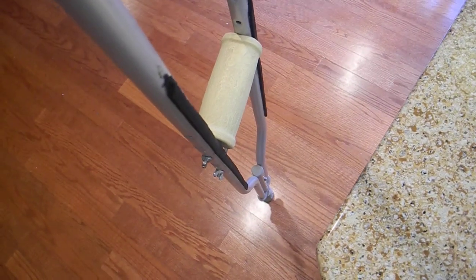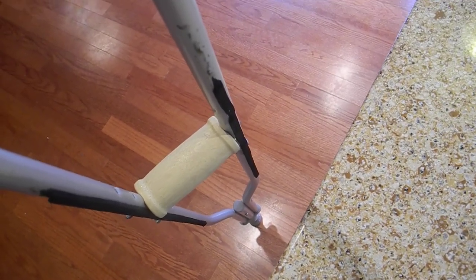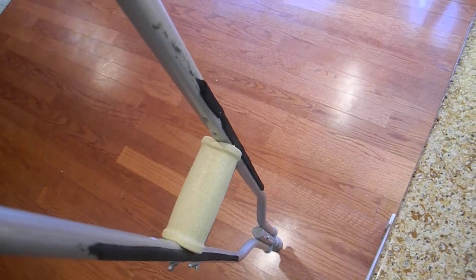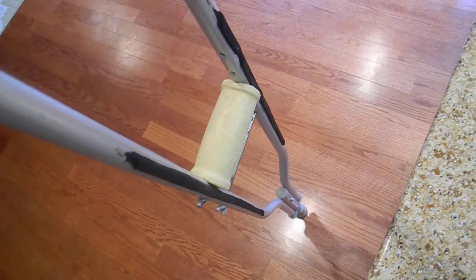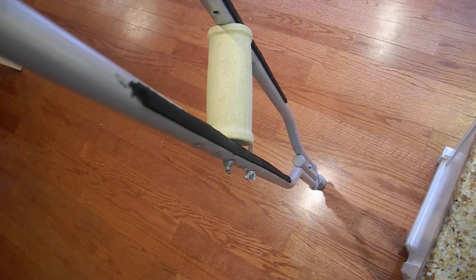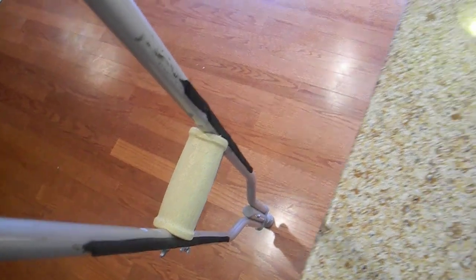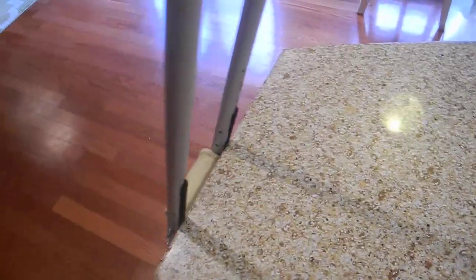What I did is take regular rubber foam sealer — like window sealer stuff — and just with the sticky tape, stick it on the crutch like that. This has been on here for about 10 years so you can see where it's falling off, and I would put it higher too. But anyway, it's the window sealer foam you get at Home Depot — just stick it on the crutch.